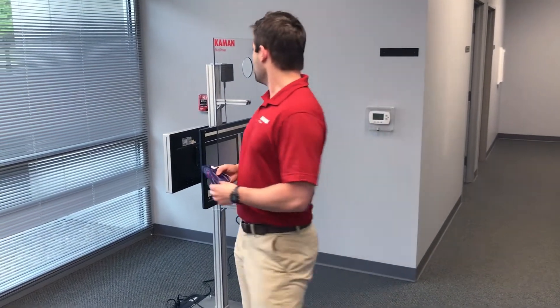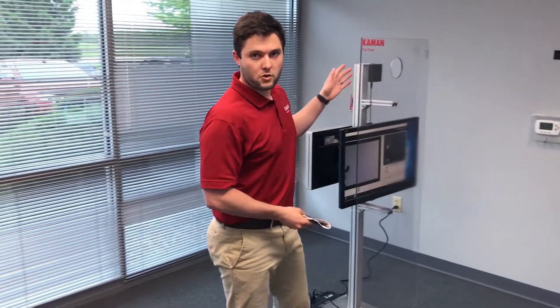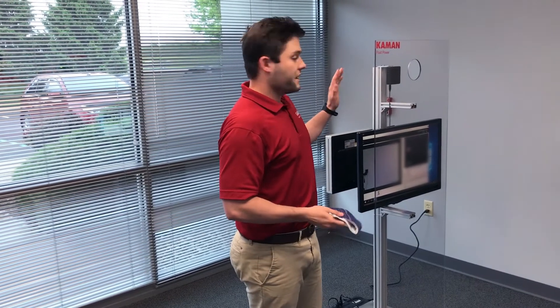Now if you pop hot — if you run above the 100.4 degrees Fahrenheit that the CDC recommends as a fever — it gives a buzzer sound and you report to HR or health and safety officials for further screening or instruction.